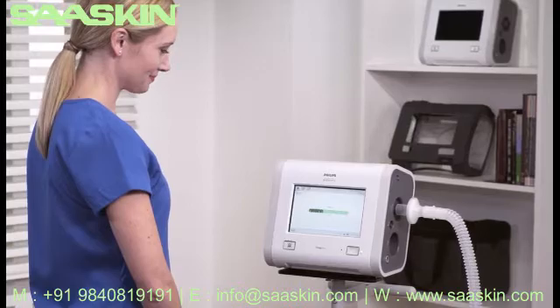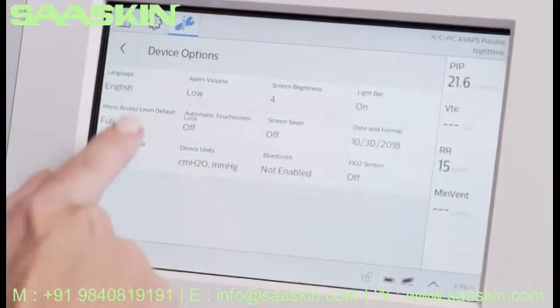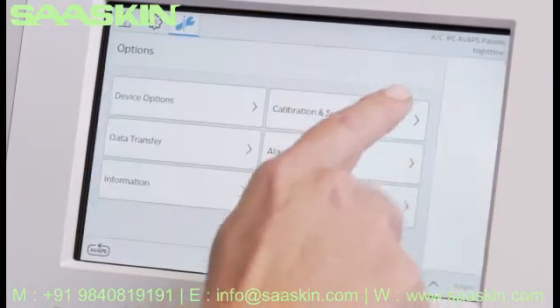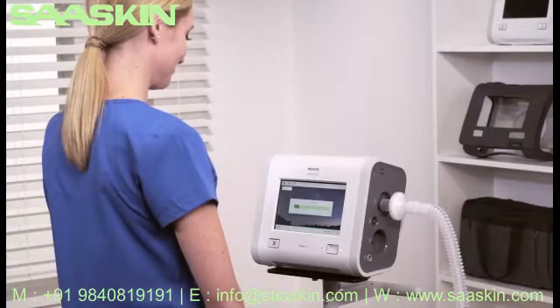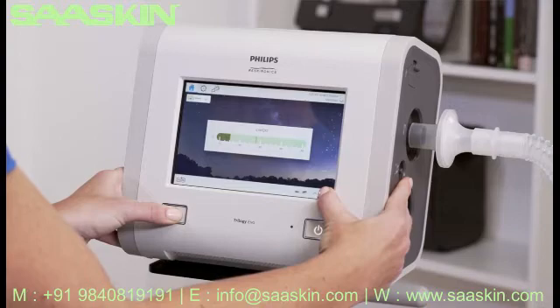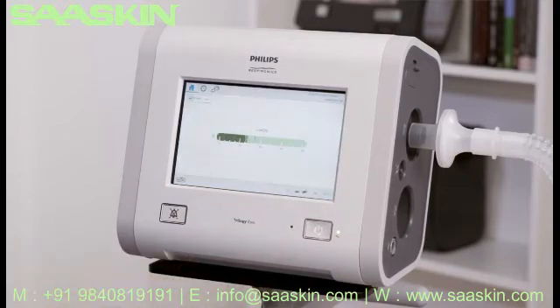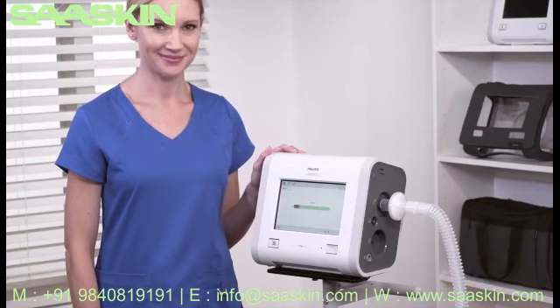In order to see the customized window background, change the device to limited access by selecting Options, Device Options, and then Menu Access Level. Now select Limited and tap the check mark, then return to the home window. To go to temporary full access, press and hold the digital clock and then the Alarm Silence button and keep holding them together for five seconds. A confirmation pop-up window will appear — follow the instructions. Taking the time to become familiar with Trilogy EVO's functions can help you deliver quality, efficient clinical care and enhance patient comfort.